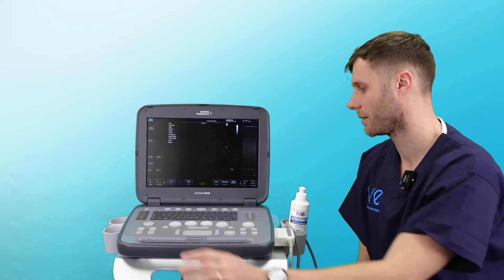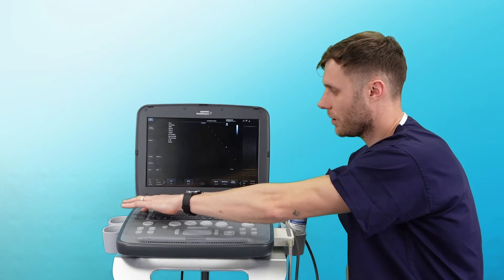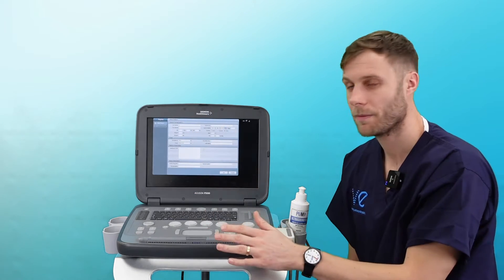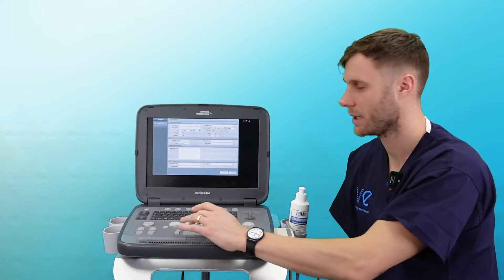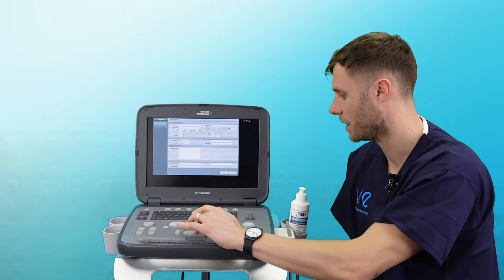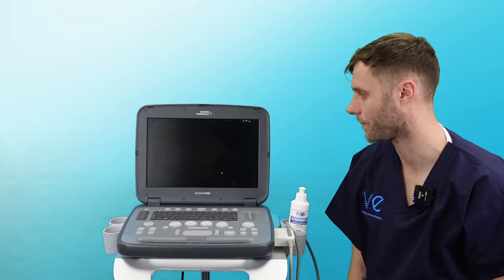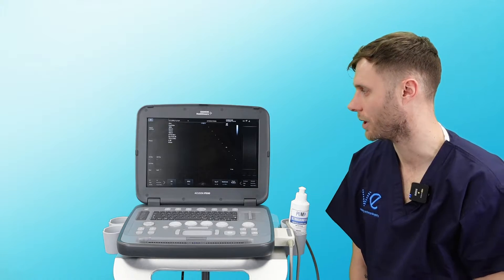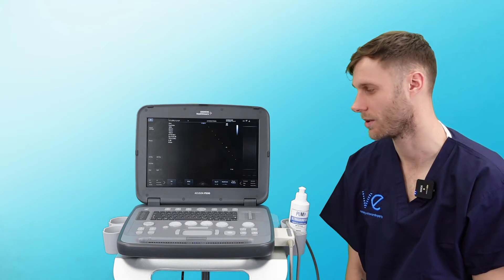To start a scan, always start top left hand corner — hit the patient button. This brings up your patient demographics. You can use the keypad to type in all the patient demographics you want, and then when you're ready simply click OK. This will load and you will have your patient details at the top of the screen.